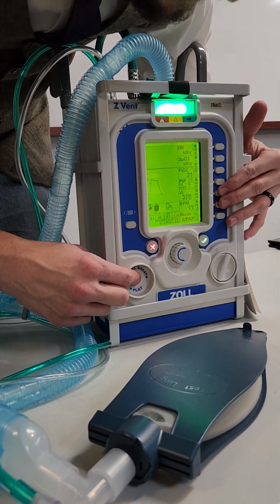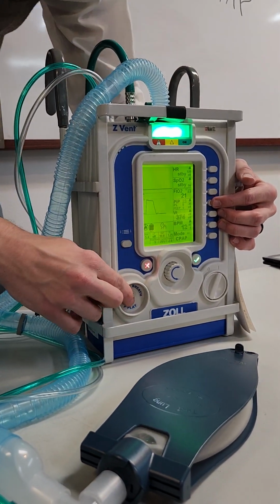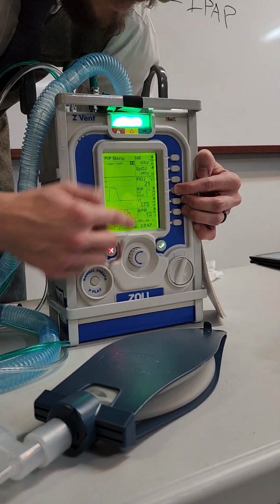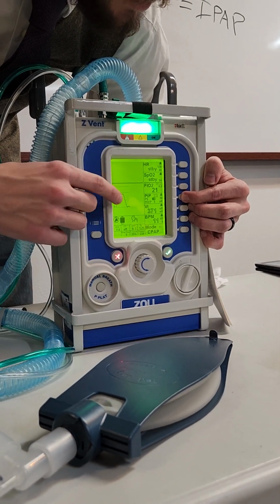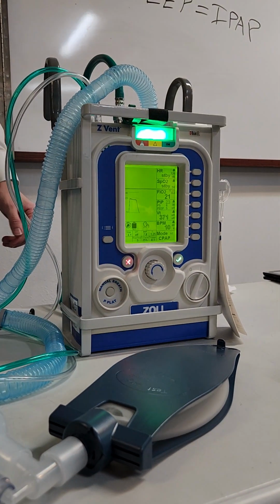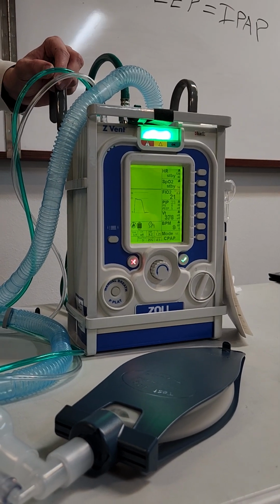To get to that, we're going to go to the pressure box here, because we've got inspiratory pressure, pressure support, PEEP, right? So it somewhat makes sense to have pressure trigger under the pressure box. So if you hold this, then the cursor automatically moves down to trigger. So I'm holding, now it's on trigger. Now I can drop the trigger down. The lowest it goes is 0.5. So the best way to go about this is when you put this on a patient, have it at -0.5.